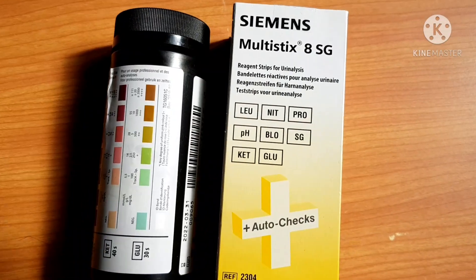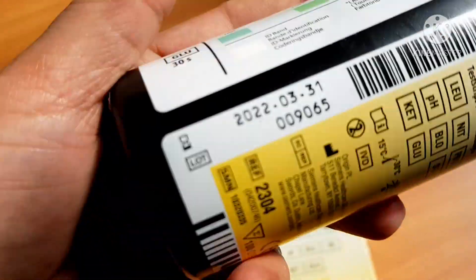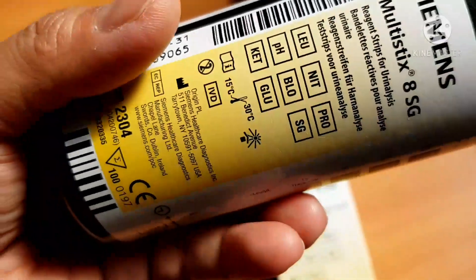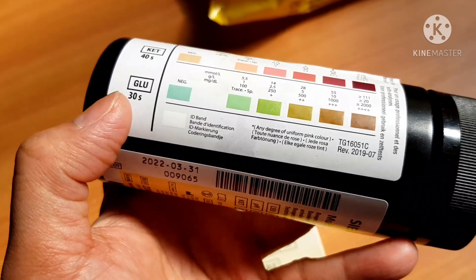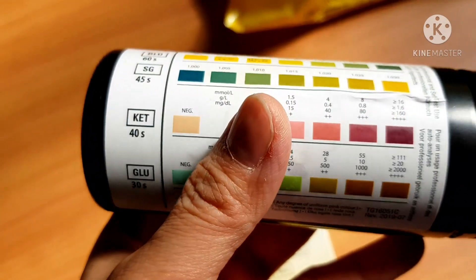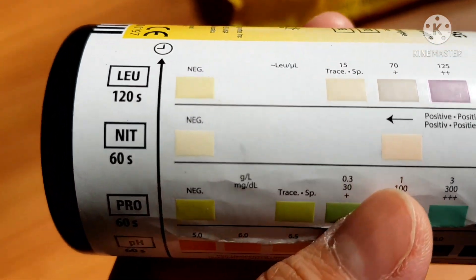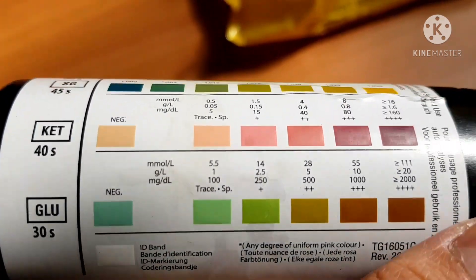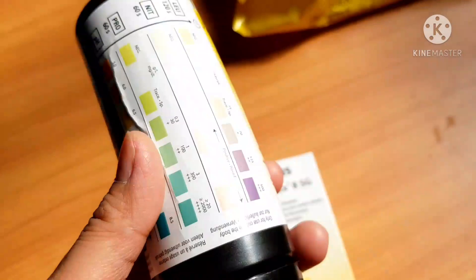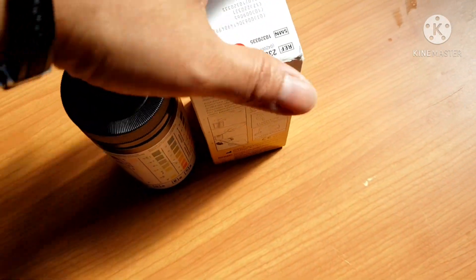That's it — all the sticks that you will use. This is the bottle, and here's the expiry date. It says here, guys, look — you can read from 30 seconds. These are the seconds when you can start reading the strip. Hopefully that helps, guys. Ask questions in the comment box and I'll get back to you as soon as I can. Thank you very much.